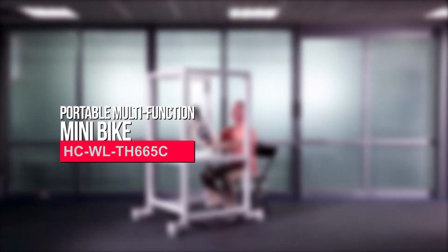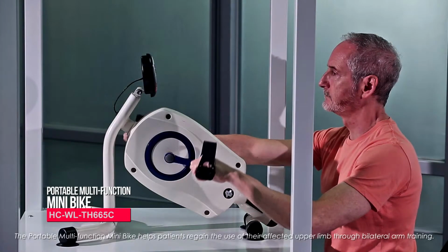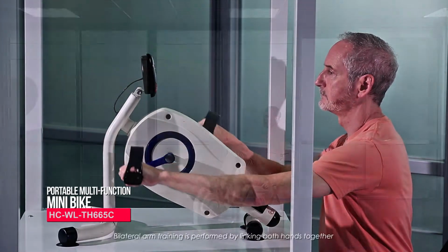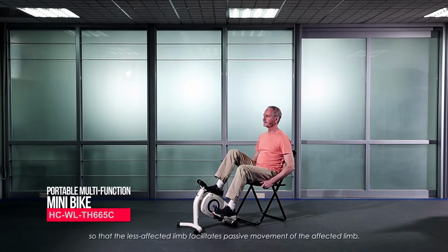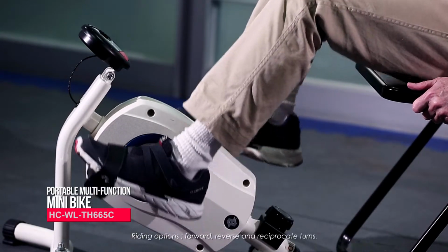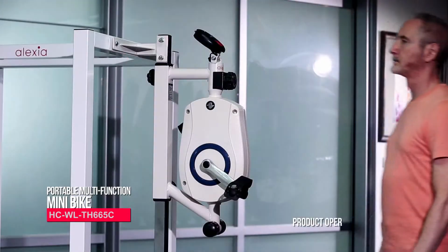Portable Multifunction Mini Bike. The portable multifunction mini bike helps patients regain the use of their affected upper limb through bilateral arm training. Bilateral arm training is performed by linking both hands together so that the less affected limb facilitates passive movement of the affected limb. Riding options: forward, reverse, and reciprocate turns.